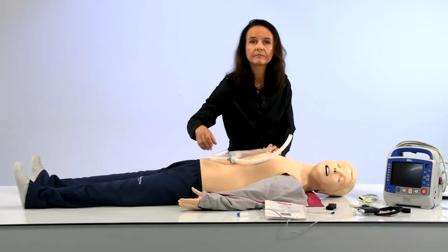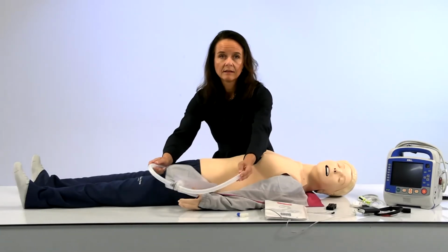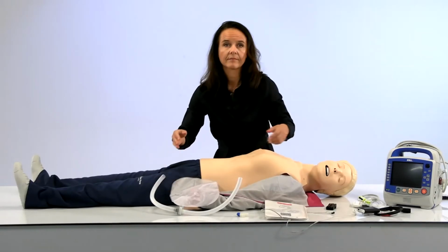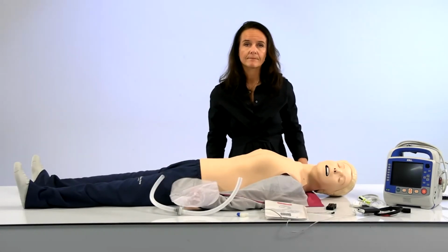Great. Yeah, and it's exciting to also feature another relatively new solution here with the ventilator adapter, as that one was released during COVID time. So yeah, another great new solution for additional training opportunities with Resuscitation.